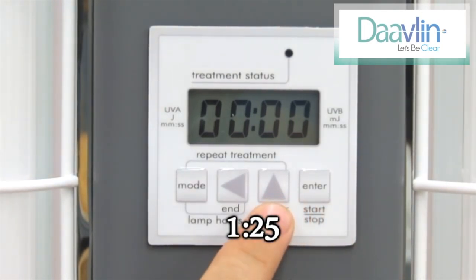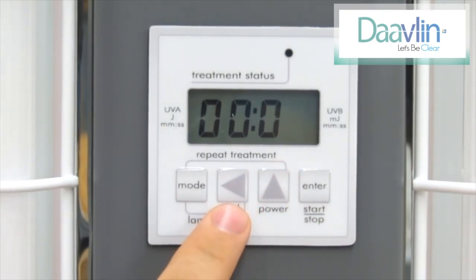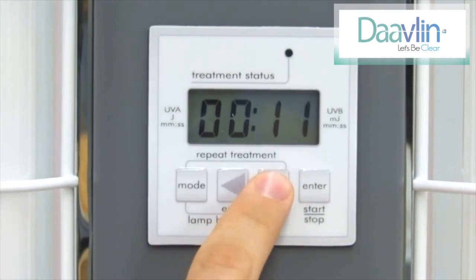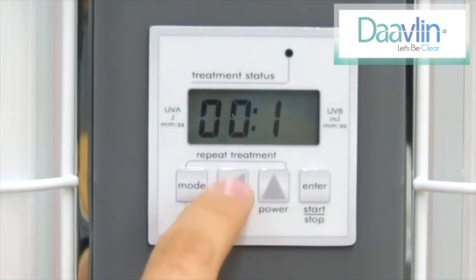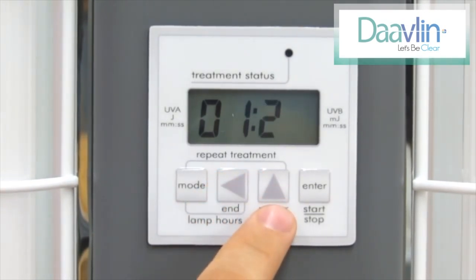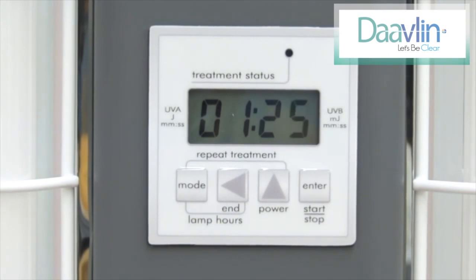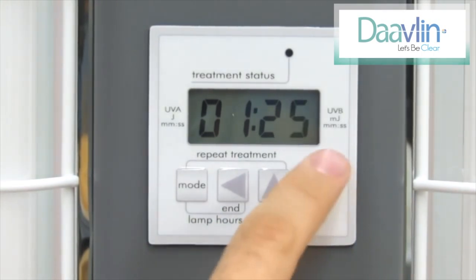Press the up arrow once and a one will begin flashing on the screen. Next, press the left arrow one time to move it a space to the left. Now enter the two by pressing the up arrow two times. Press the left arrow one time to move both the one and the two a space to the left. Now enter the five by pressing the up arrow five times. When the desired time is displayed — in this case 1 minute and 25 seconds — press the enter key one time to lock in the treatment time.